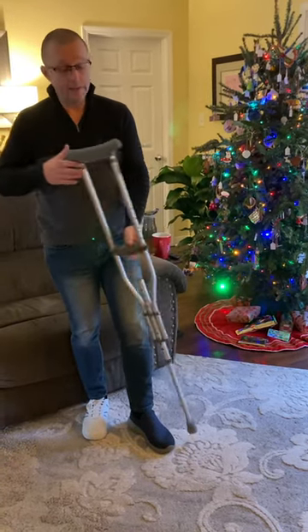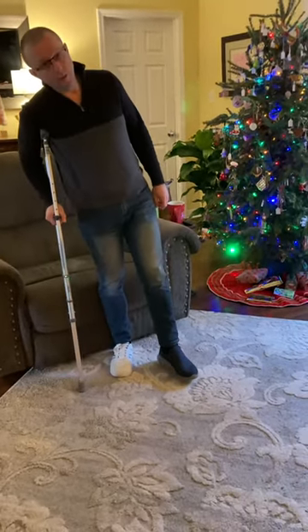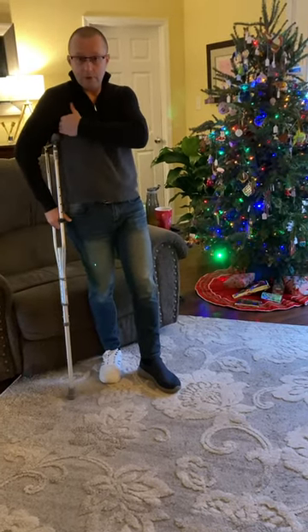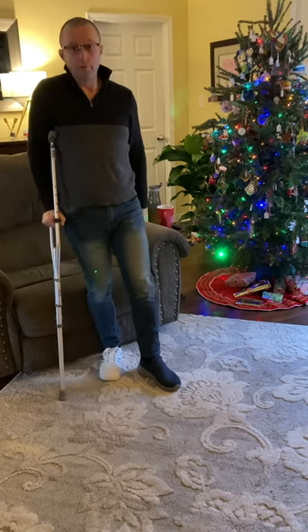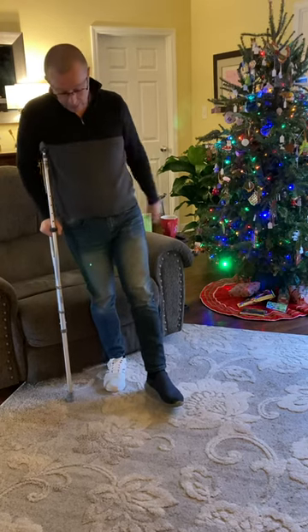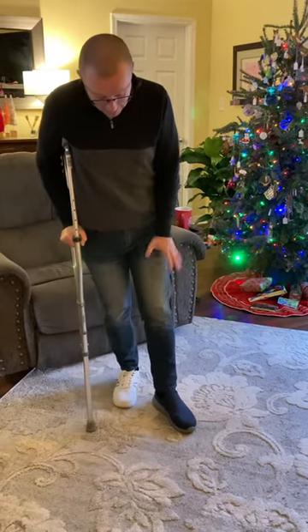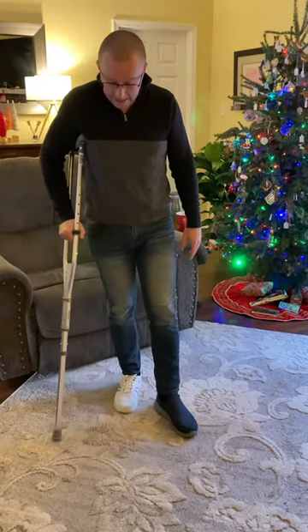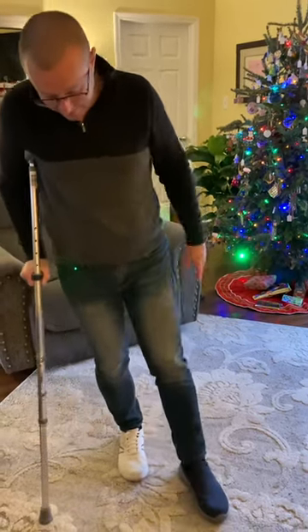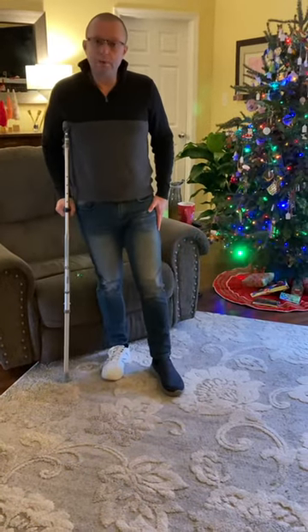What we've been taught, and this is what you can see through a lot of tutorials, is put it on the opposite side — so you're leaning away from it. You really should have a crutch that's right up under your armpit, but I don't like that rubbing me and my arm's strong enough to hold me up. You want to have your crutch up under your armpit, then go with the same foot — you can see I'm leaning off of it. I need to have it at an angle off of my foot like this, and then you take your next step. With that foot, it puts minimal pressure on it.